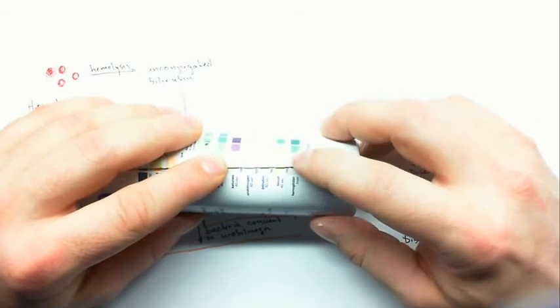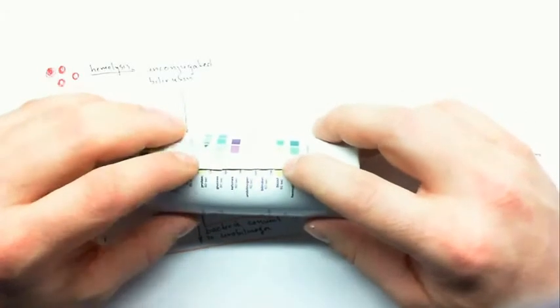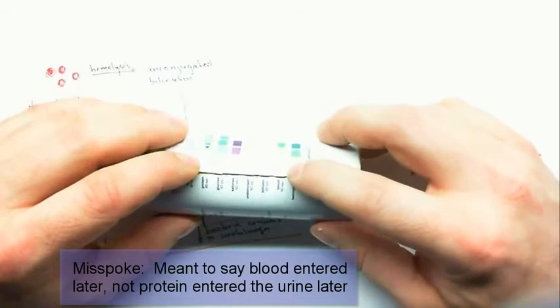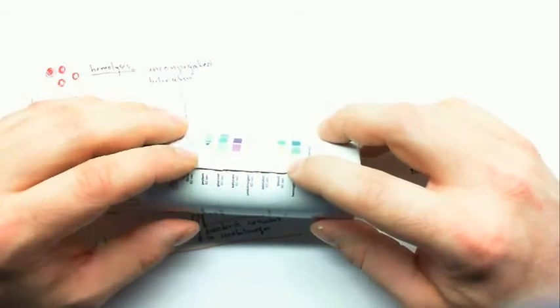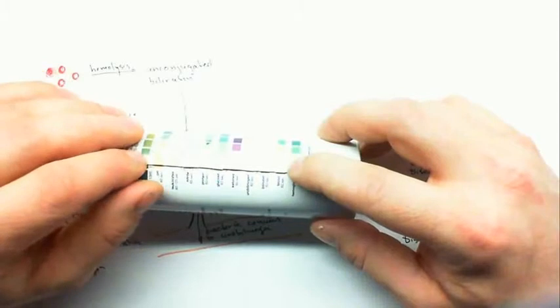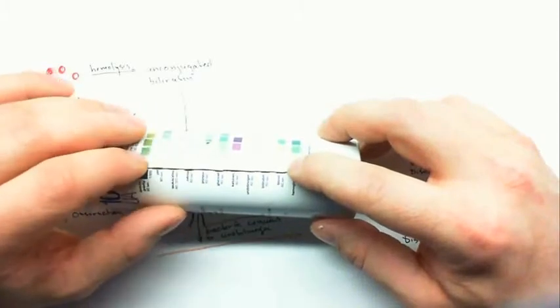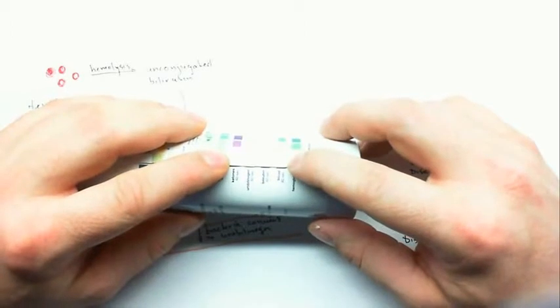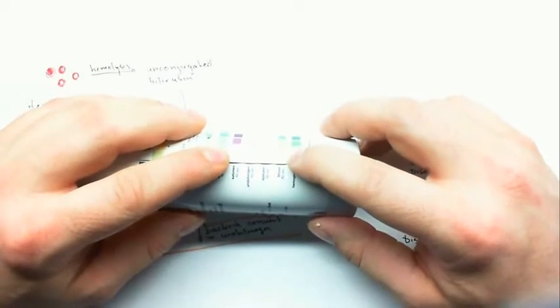So if there is blood in the urine but there's not protein, it probably means that the blood entered later, especially, and this could indicate UTI, if there are high nitrites and maybe a basic pH, or leukocytes also, to indicate a urinary tract infection. Occasionally in long-distance runners, blood is also forced through the glomerular filtration membrane, and that's considered benign.